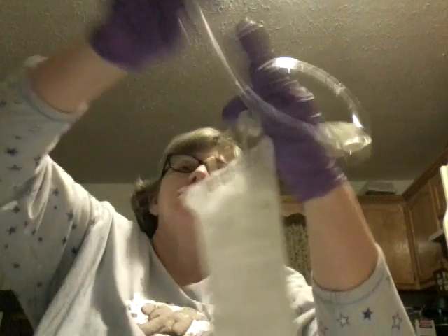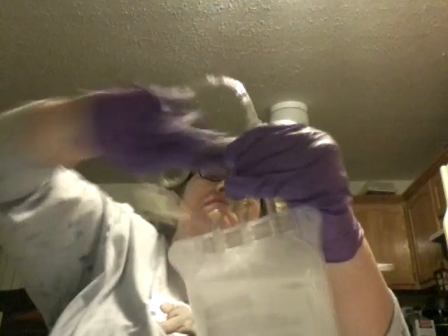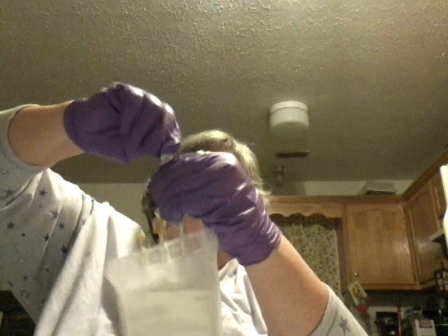I finally got the bag full. Now I have to remove this part that was helping me fill that baby up, throw it in the trash. It closes up right here so we don't lose any of that liquid gold. So the bag is full — now to get the pump ready.